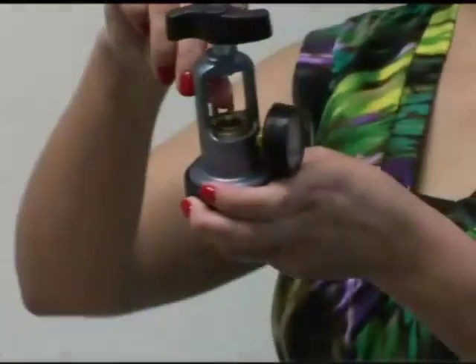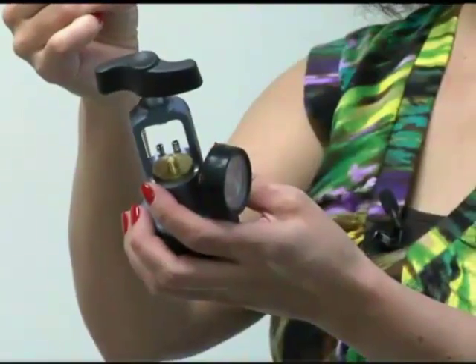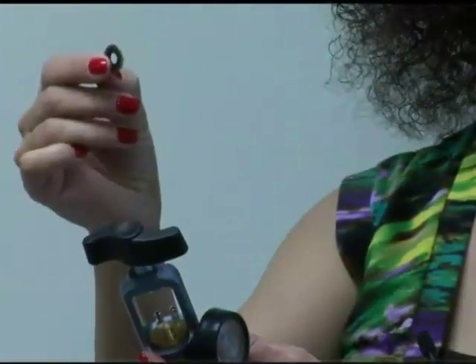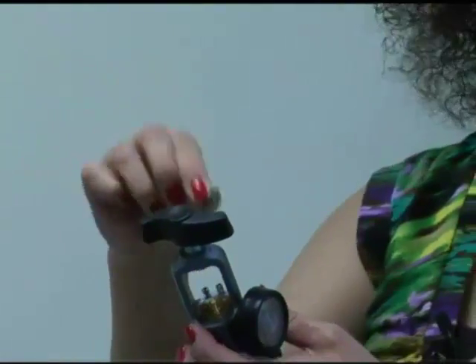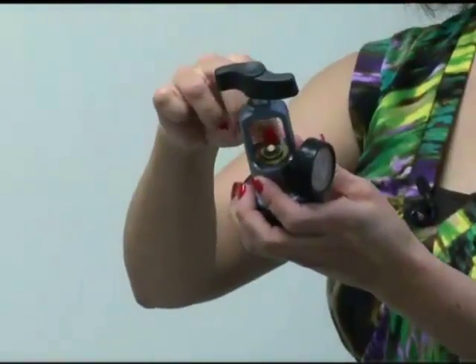Right inside here there's a little washer. This washer tends to come off or it will crack. If you don't have this washer you're going to need one. It just pushes down right inside on this prong that sticks out.